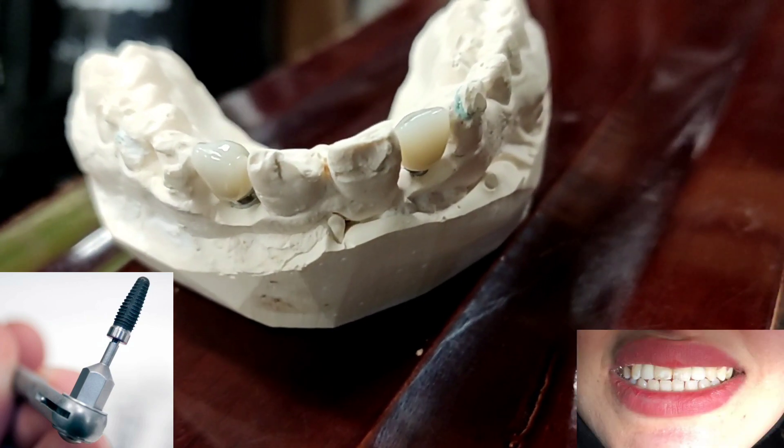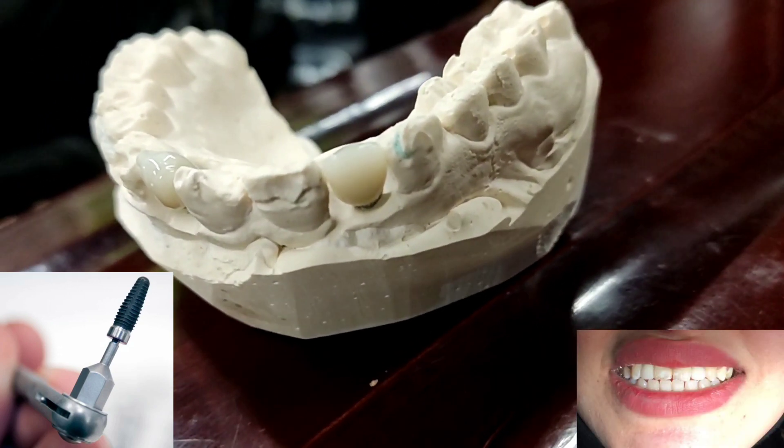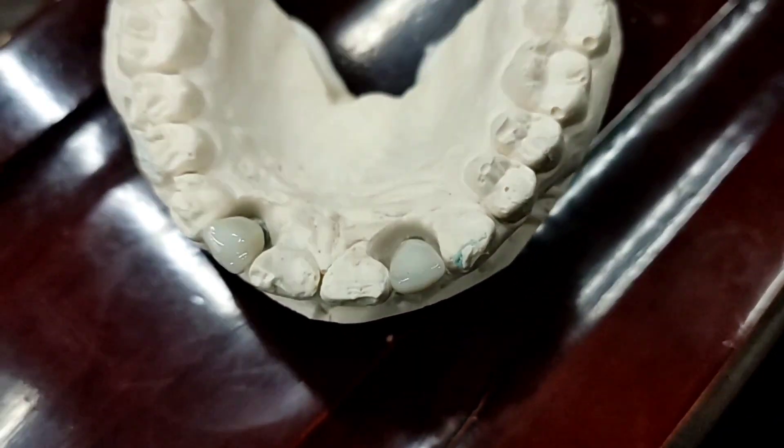The T6 Torque is available in 4 different diameters and 6 different lengths. This implant model is fairly recent and we don't have a catalog available for this model. Nucle OSS also offers 8 other implant models.